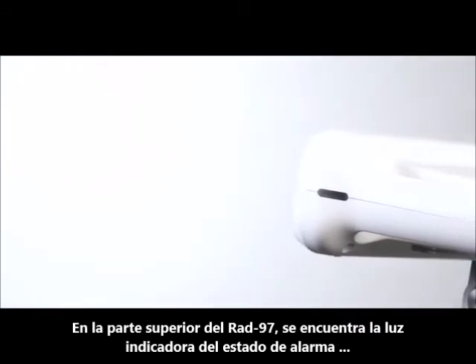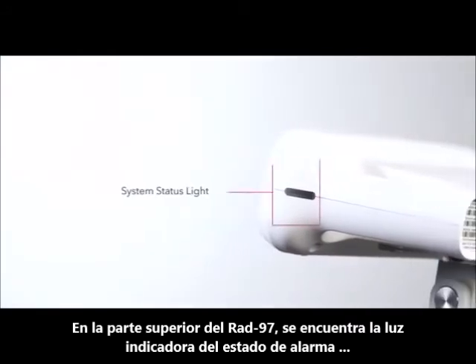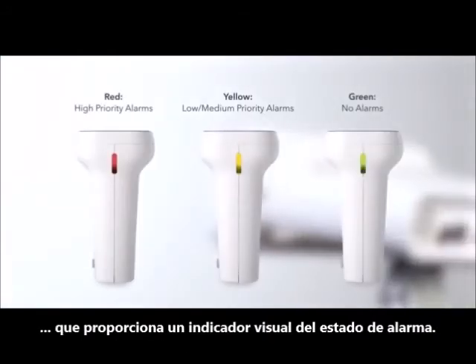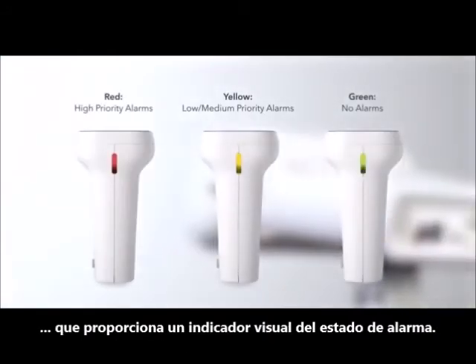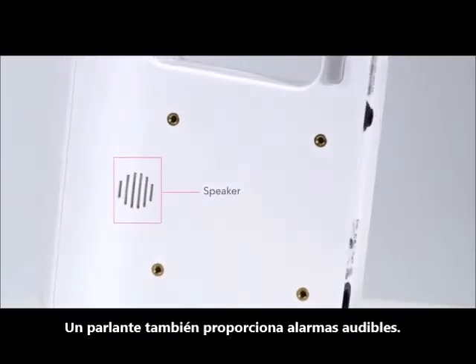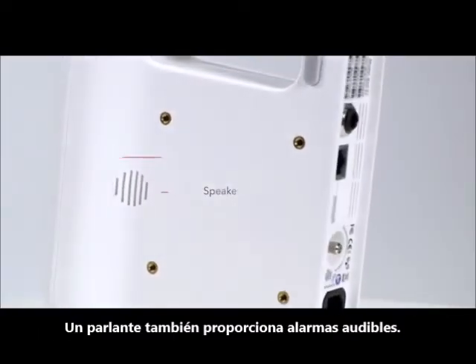On the top of RAD97 is a system status light which provides a visual indication of alarm status. A speaker also provides audible alarms.